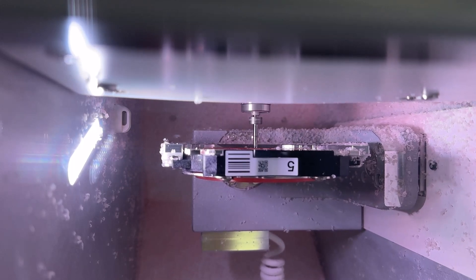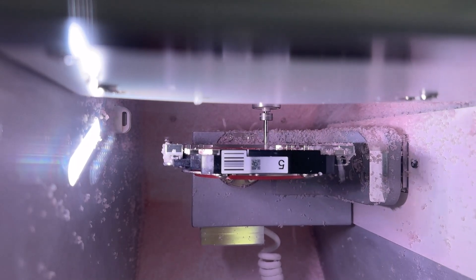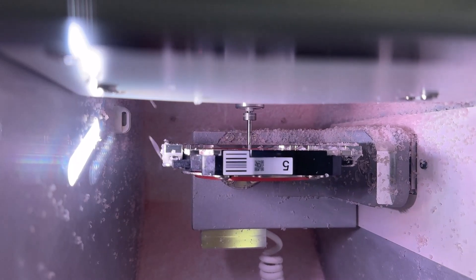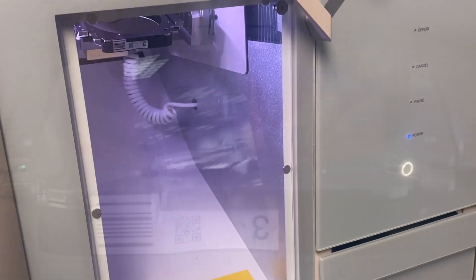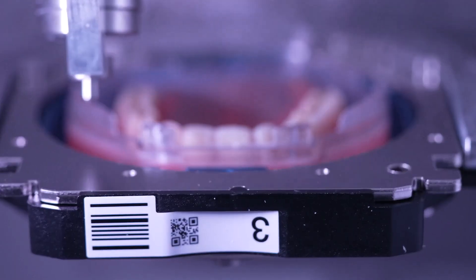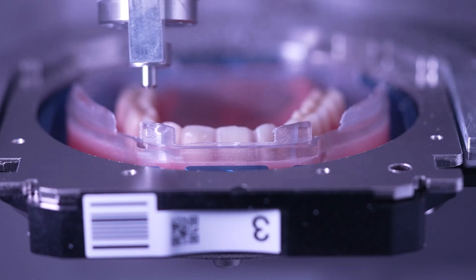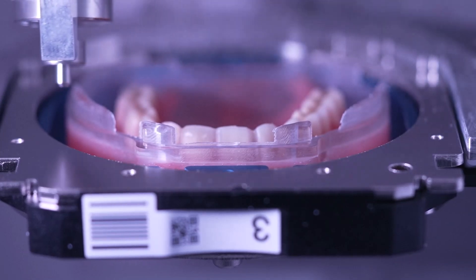With the 53DC we're now utilizing the ZPB tools, which are specialized for milling plastics, acrylics, and thermoplastics. The 53DC is also a cleaner milling machine — it has automated cleaning processes that take place at the conclusion of a milling job. It'll blow milled debris back towards the back of the machine where the suction unit is located, and it allows you to select three different cleaning options: fast, standard, or high-quality. The spindle and air-blowing unit clean off the puck before transferring it back into the chamber, resulting in a cleaner working space.